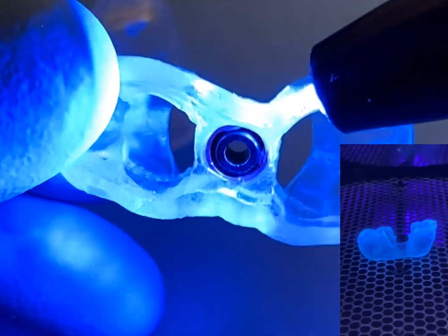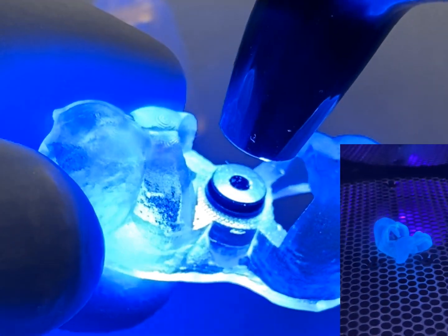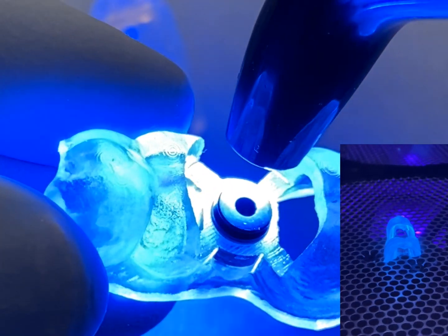Complete curing is essential, so take any and all steps necessary to guarantee complete polymerization of all adhesives.